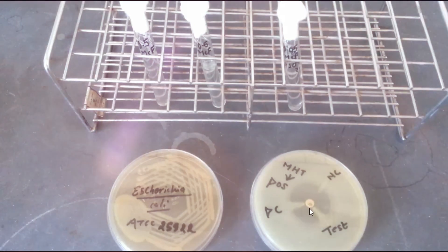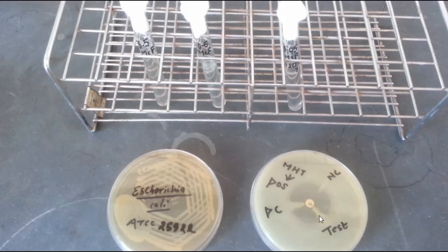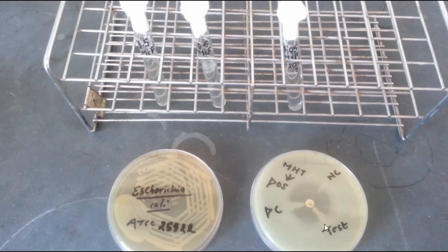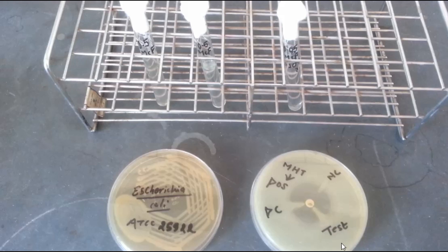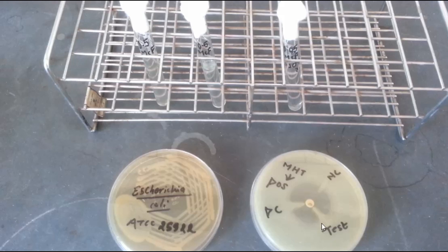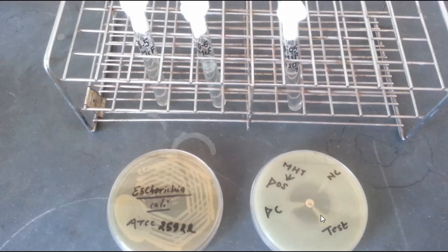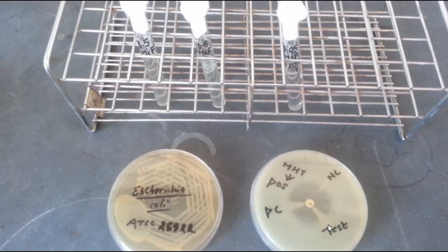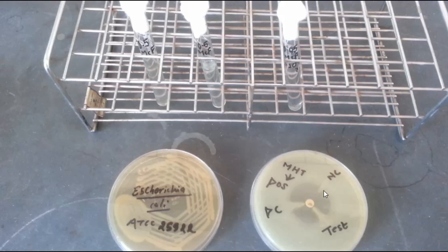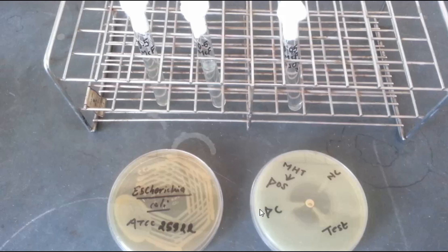Here you can see the test bacterium streaks were made from the edge of the disc outward. Multiple test bacteria were streaked in the same way, along with the QC strain, each inoculated in a different direction.